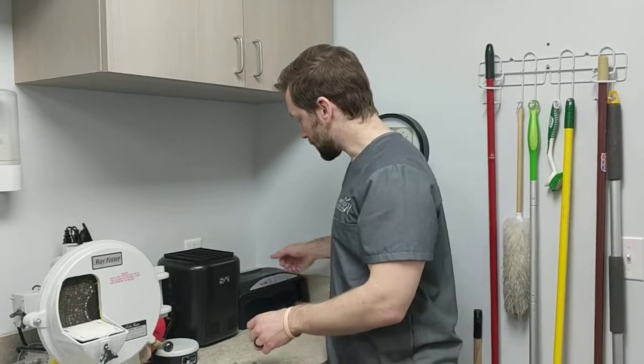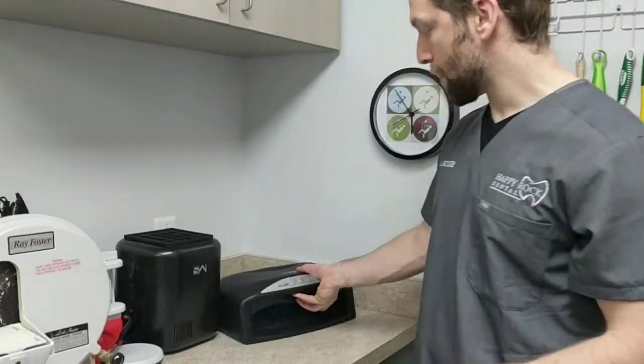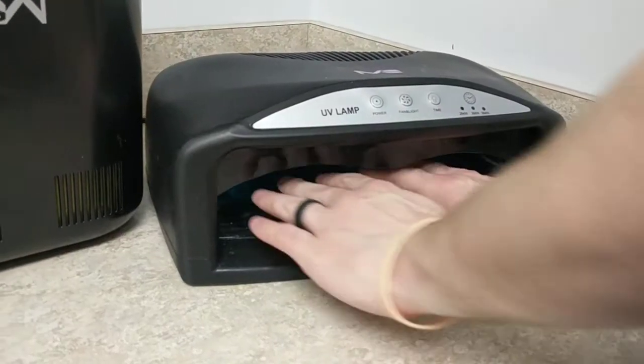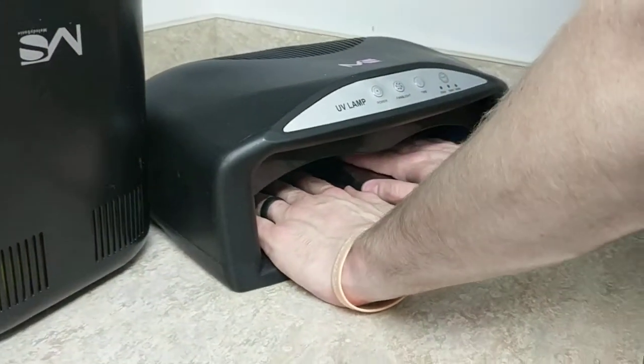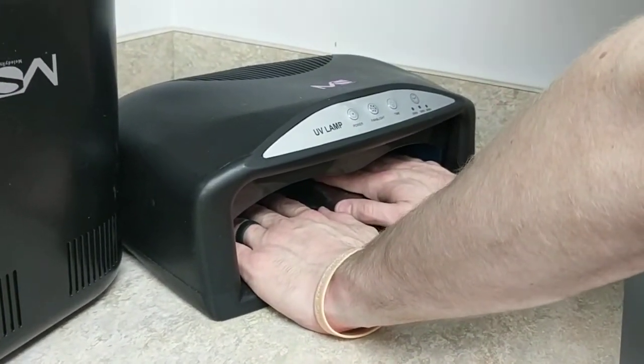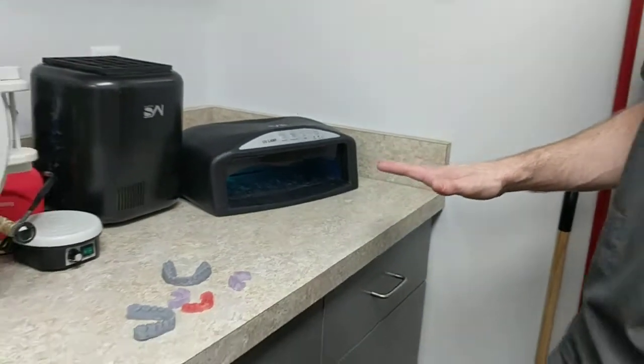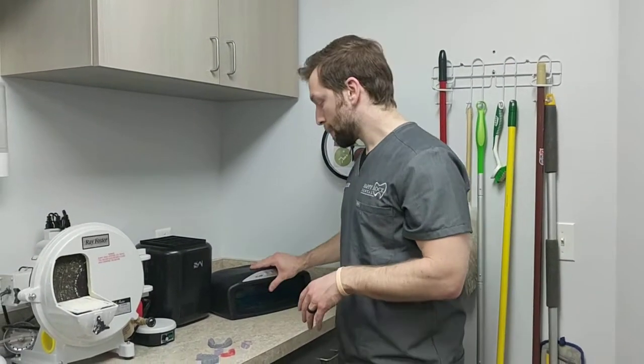One of them is fairly simple — it's a 54-watt dual mirror nail curing bed, really used for curing acrylic nails. But the same 405 nanometer wavelength is what we need for most of the 3D printers used in dentistry — for instance, the Form 2 and the Moonray printers both cure at 405 nanometers.